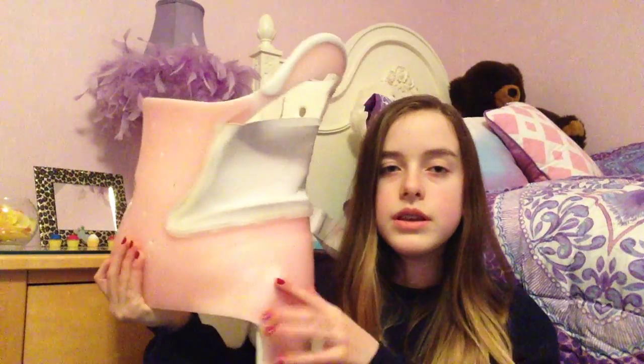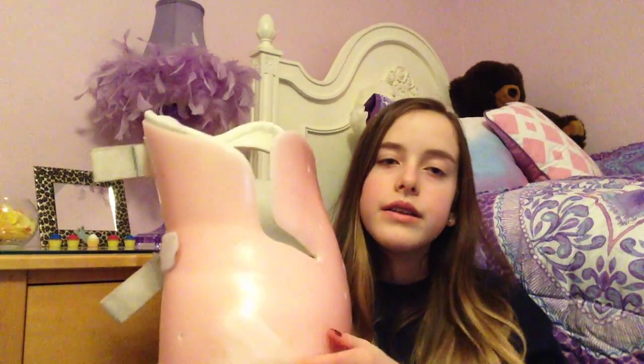I had to get the hips blown out, as I said last video, so it's like this colored right there. And then on this side, the hip also is blown out. There used to be padding that came from here and then attached these two, but it made it really hard to breathe, so they just took off the part that attached them, but this padding is still there. And then the back of it looks like this, and there are just little lines to tell how much to tighten it.